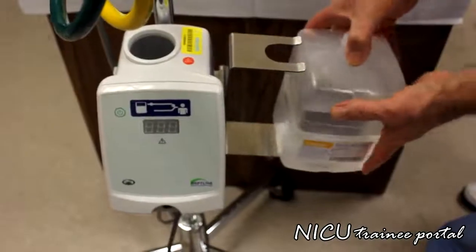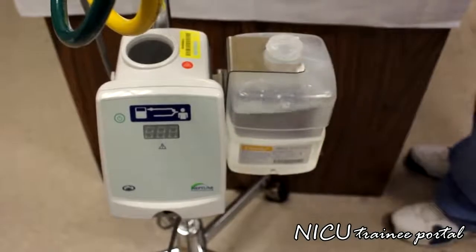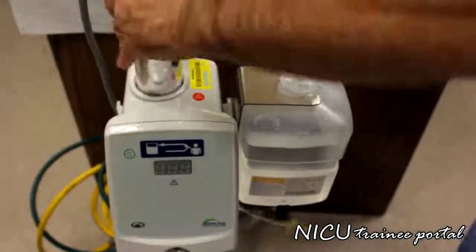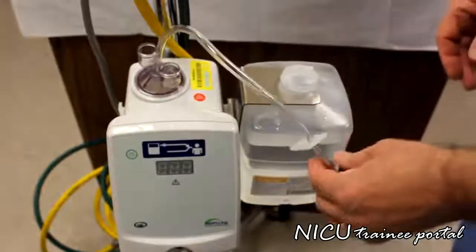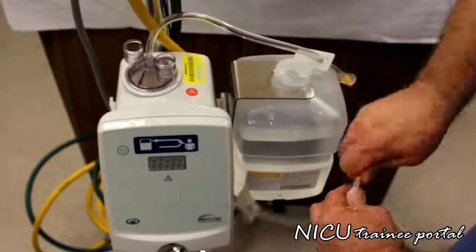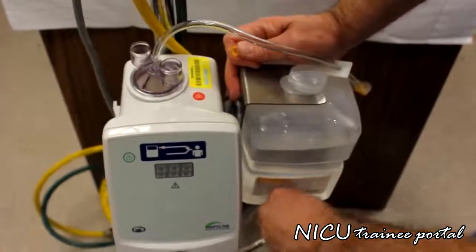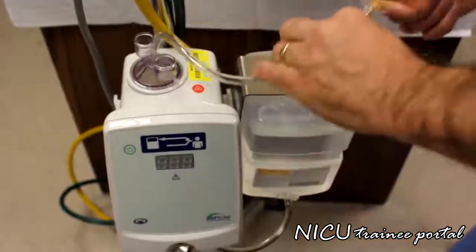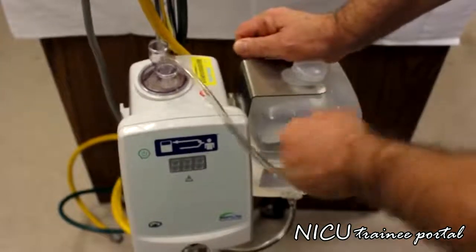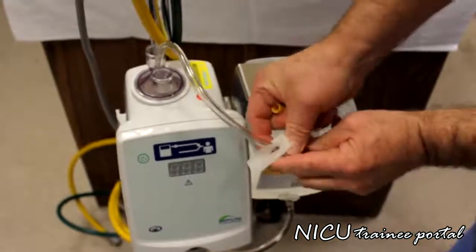First thing we put in is the water chamber. It just clips in there, make sure the label's out front. Next step is put in the water column chamber. It just slides in like that. And I'm going to undo the caps here, and the bottom one gets plugged in. Pierce the water container. Same with the top. Just push and turn. Make sure your clamps are not clamped.